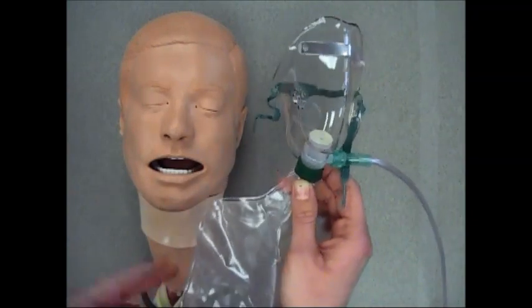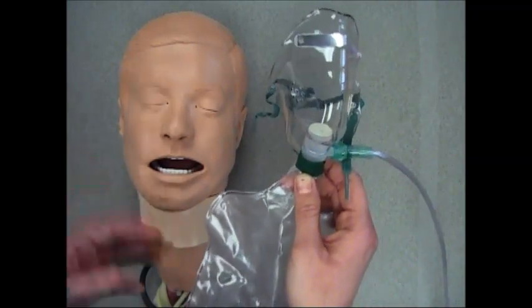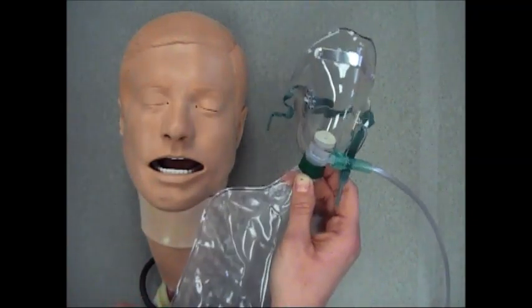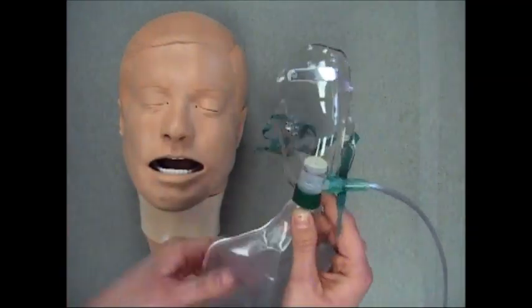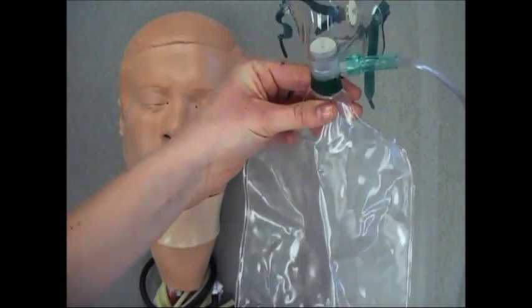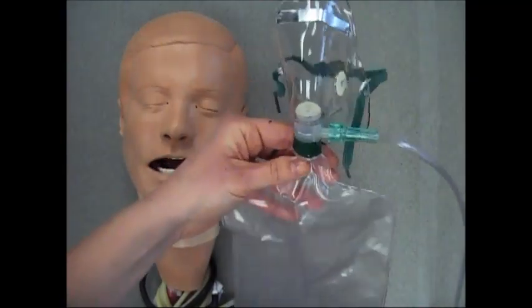As you will see here, it looks like a simple face mask at the top, but it has a reservoir bag attached. A few reasons why we call it a non-rebreather mask is because of the one-way valves that you see on this device.